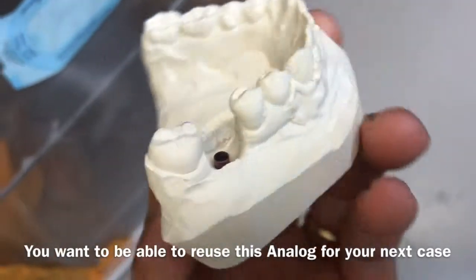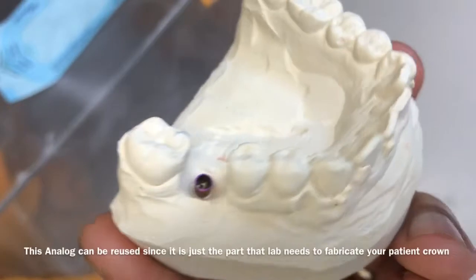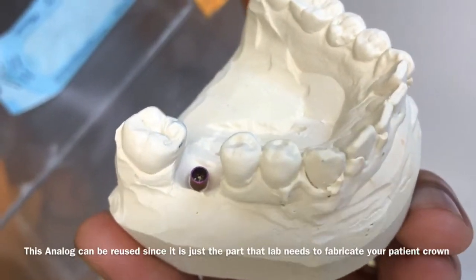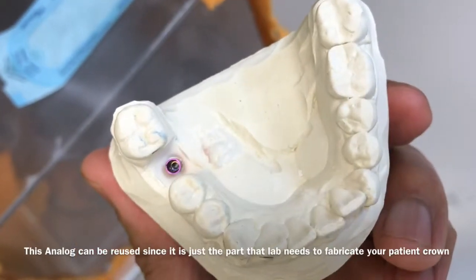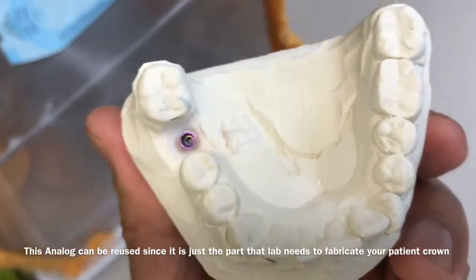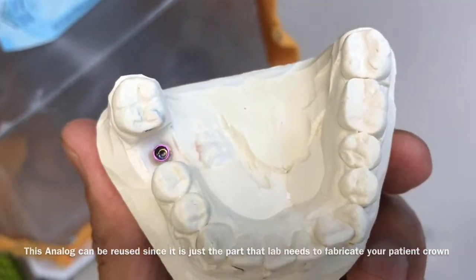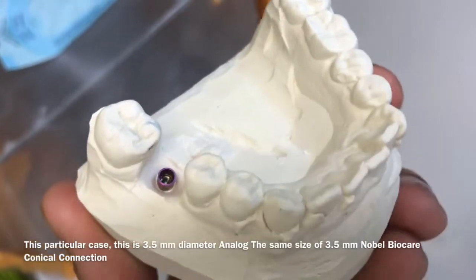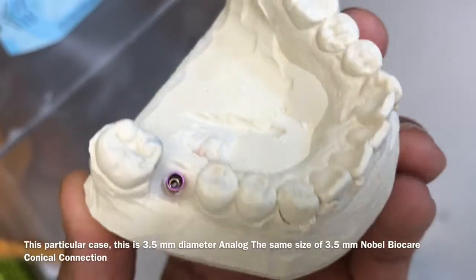Basically you retrieve it, send it back to the lab in the particular implant site and case. In this particular case, this is a Nobel 3.5mm pink color implant analog.